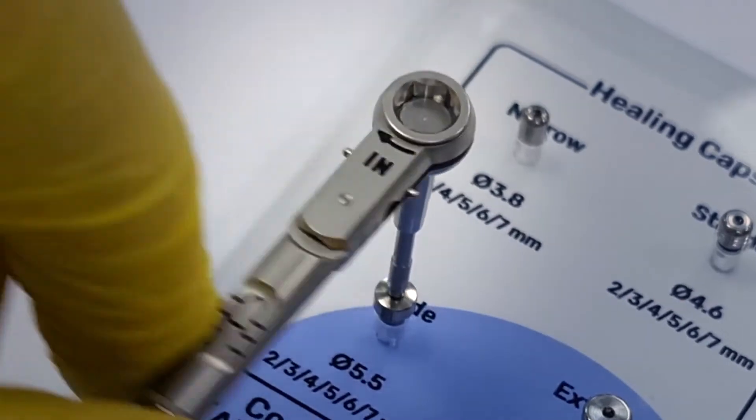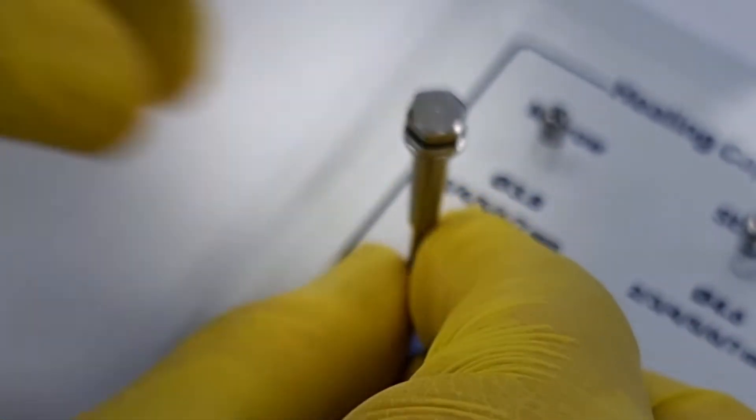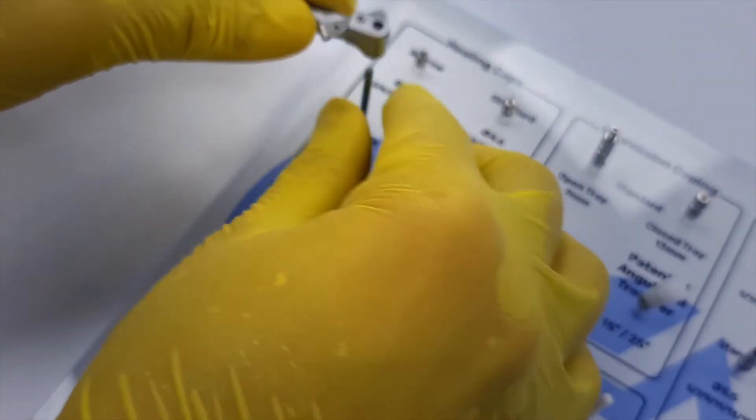Don't have enough space? Want to use the implant motor instead? No problem at all. This is the latch grip so you could put your counter angle on it and continue normally.